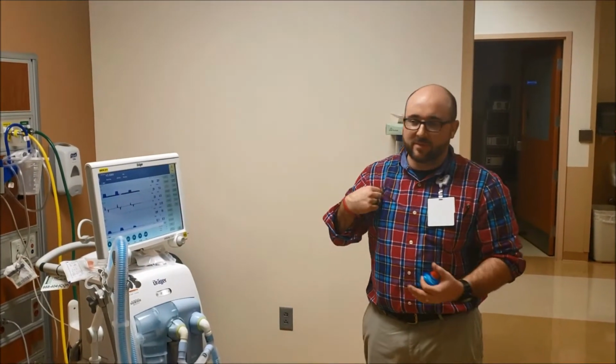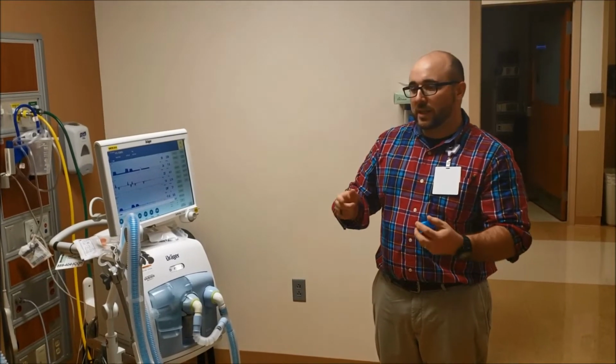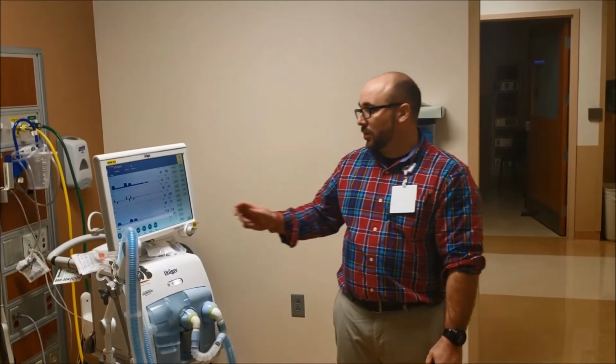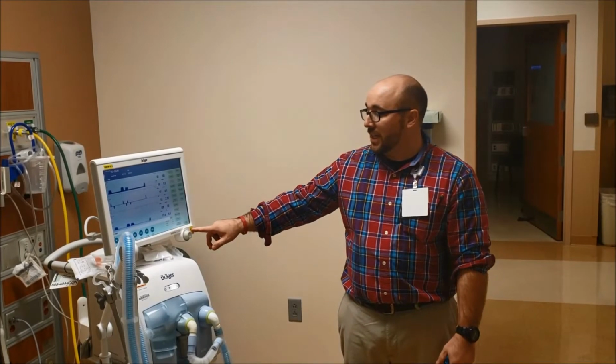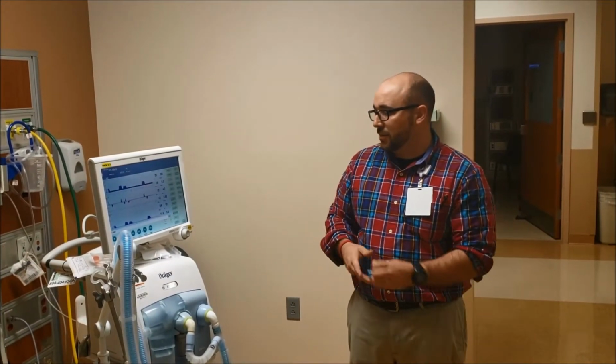But sometimes it may not. It's not a glitch in the system, but if something alarms quickly, you silence it, and that's what we like to do. We like to silence because that's a hard key, and we don't like the beeping in our ear, and it just escalates each time it alarms.